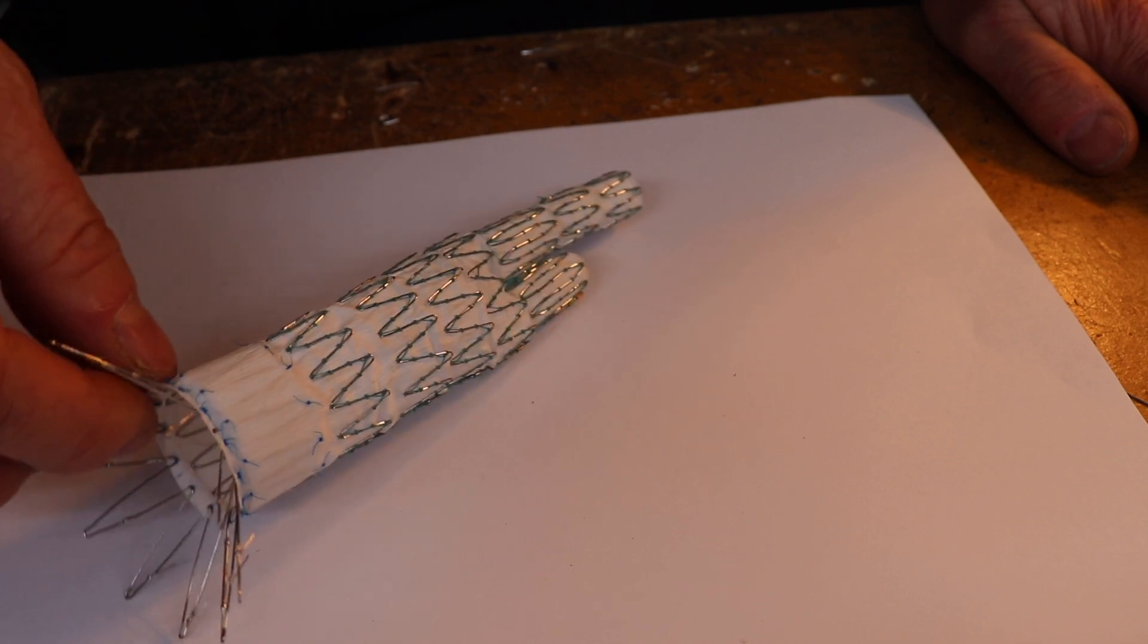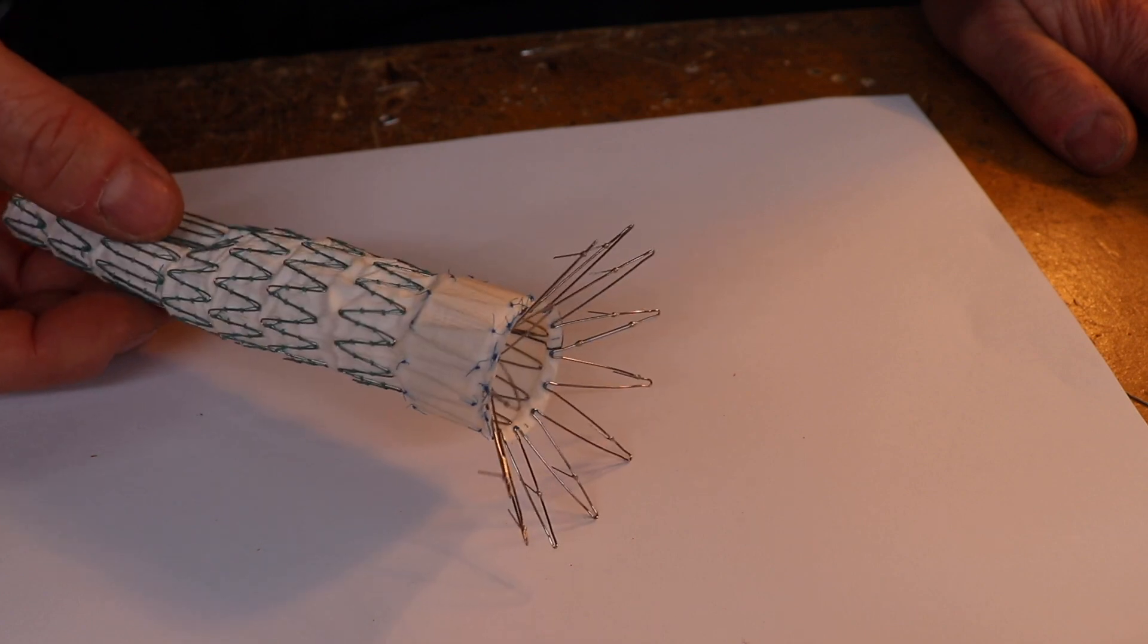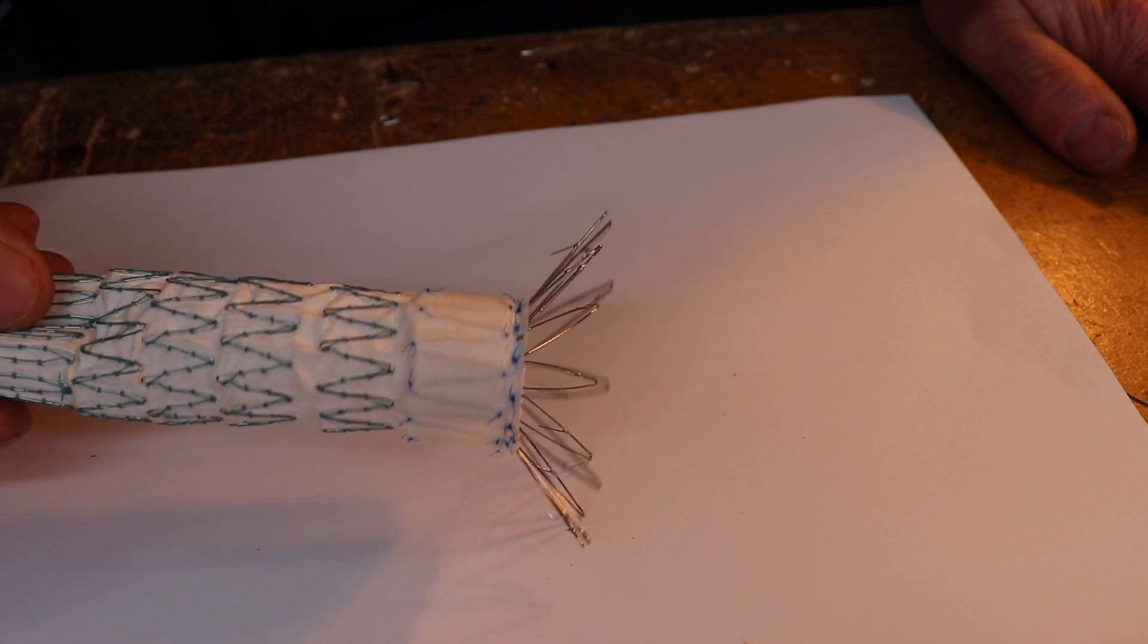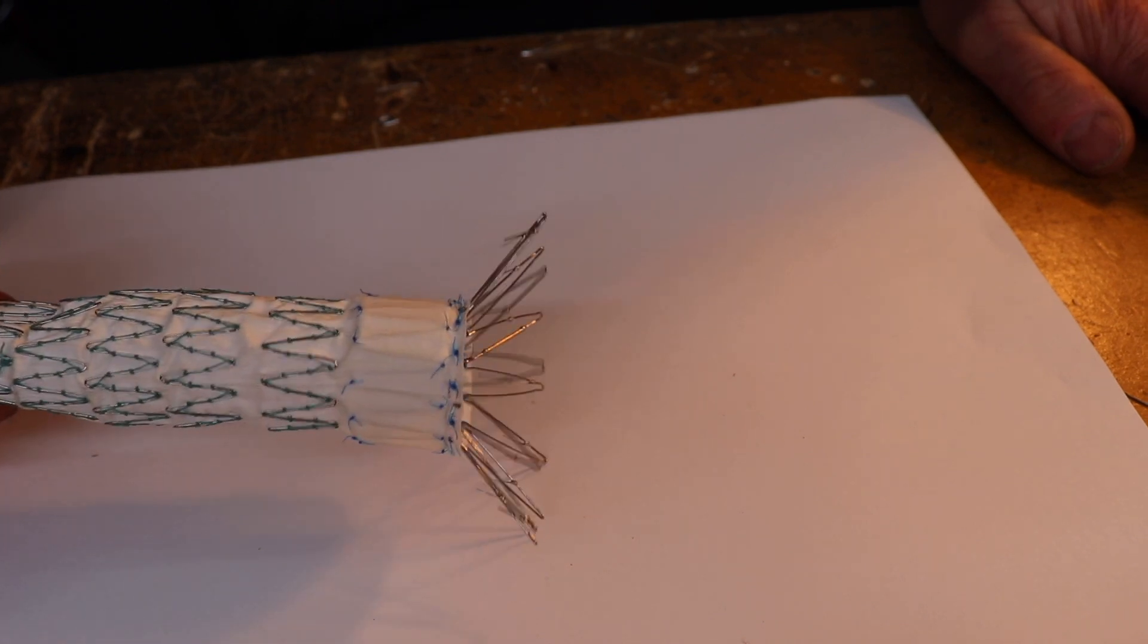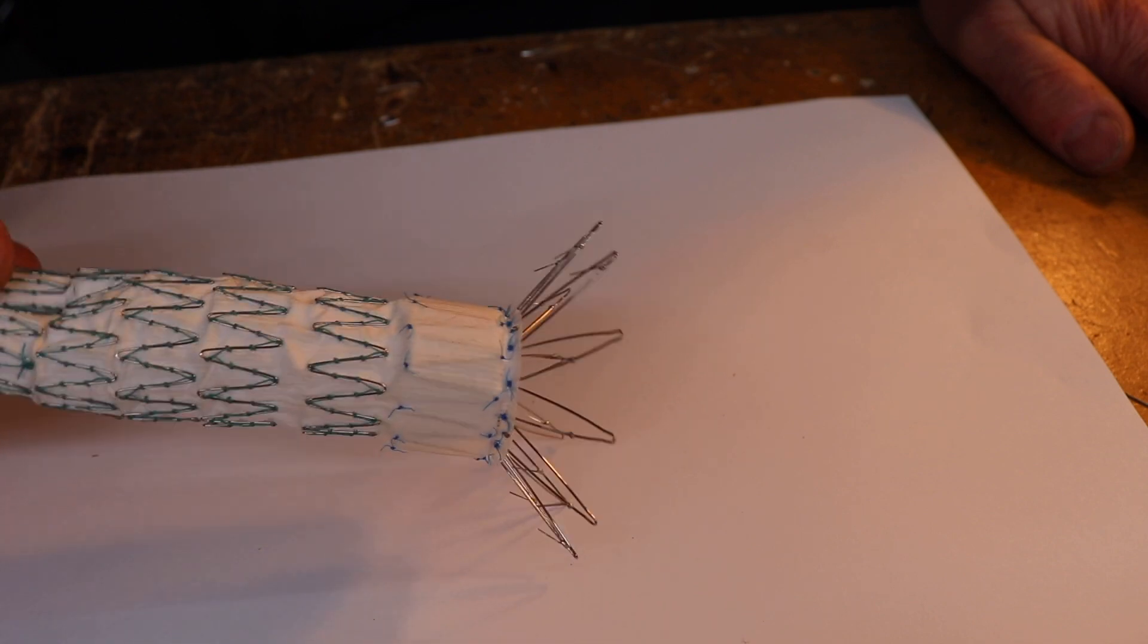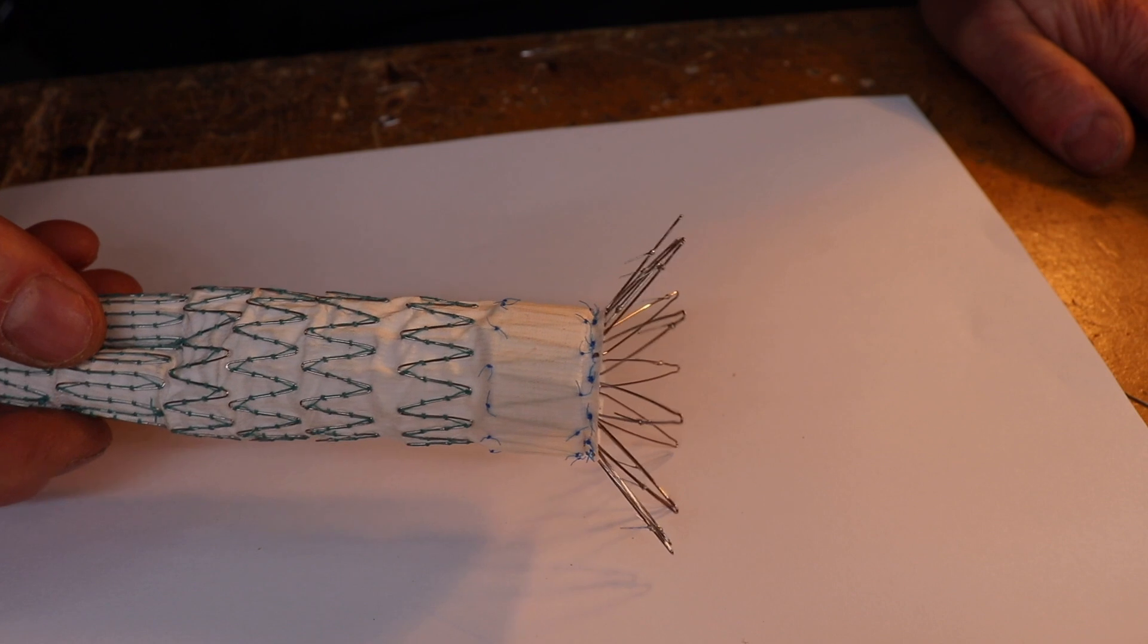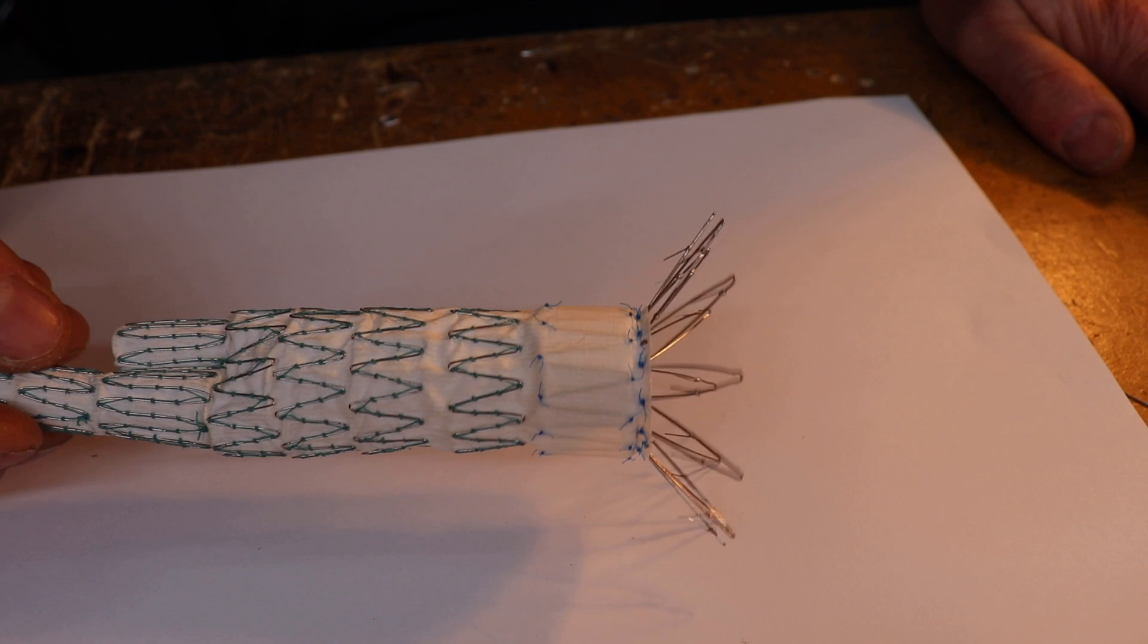This sort of thing would probably set you back four or five grand, maybe more. Obviously it requires quite a lot of logistics to put one of these things in. You need x-rays. Some people do them with radiologists. A lot of vascular surgeons these days actually do this as part of their normal routine. These endovascular grafts are put in quite regularly and by and large they are pretty good.